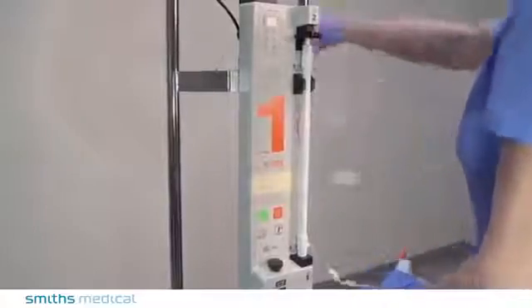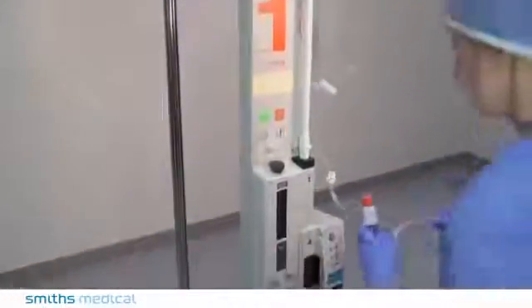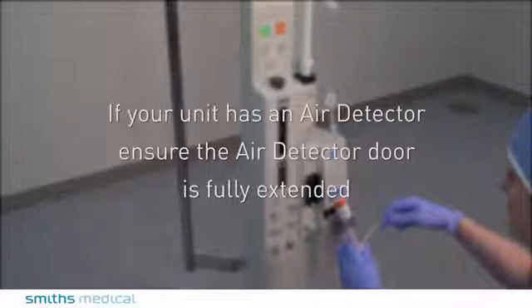If your Level 1 Fluid Warmer does not have an air detector, you may skip to the next step. If your Level 1 Fluid Warmer has an air detector, ensure the air detector door is fully extended.